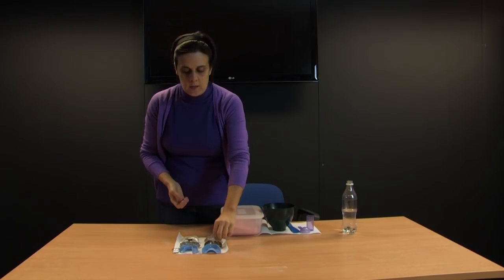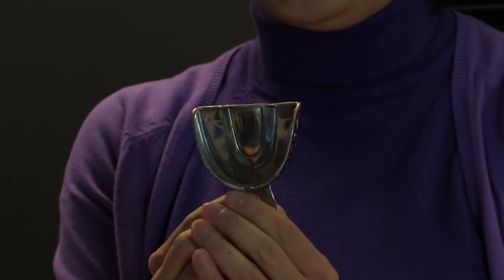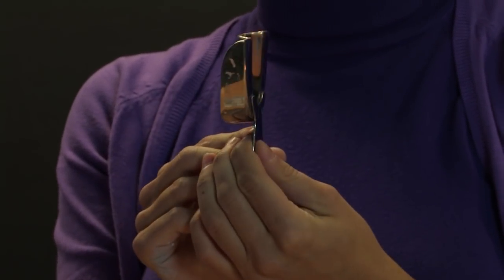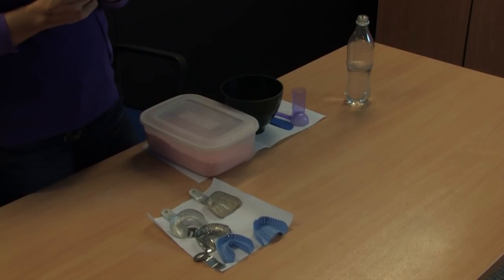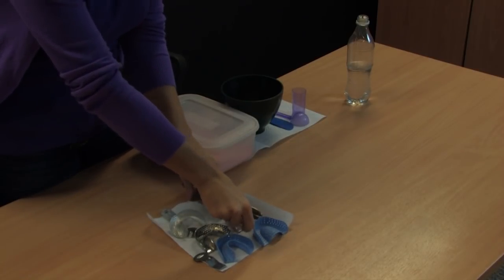Impression trays can be dentate or edentulous depending on whether the patient has teeth or not. We say that the tray is dentate when the patient has some or all of their teeth in the mouth. Here we have an example of an upper dentate impression tray. You will see that the tray is quite deep and quite square in shape. When we compare this to an edentulous tray, the edentulous tray is used for patients who have no teeth in their mouth.